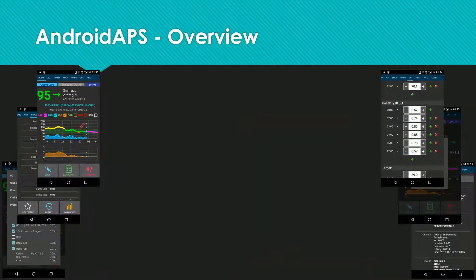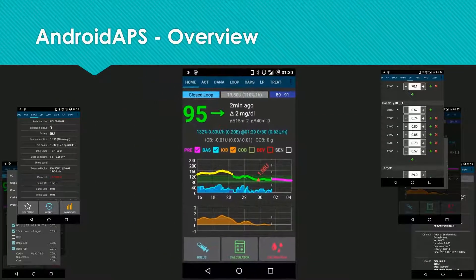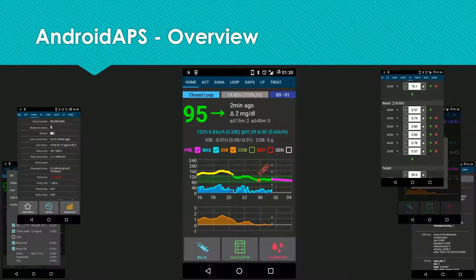Now I want to give you a short overview of the app. This is the home screen where you do almost everything from. You can monitor what the loop is doing. The upper chart shows the basal changes, glucose values, and treatments. For the lower chart, you can choose to show more detailed algorithm-specific data like insulin on board, deviations, and others. In the upper left corner you can see what loop mode you are in — here, closed loop. You can switch to open loop or suspend the pump.